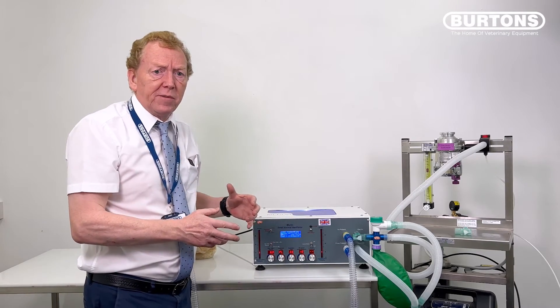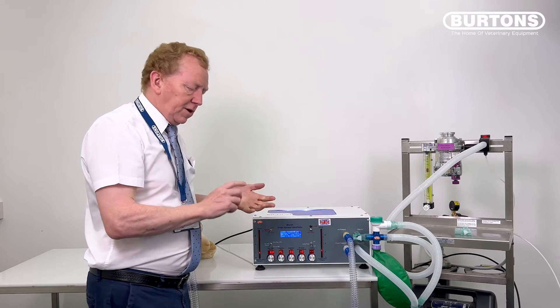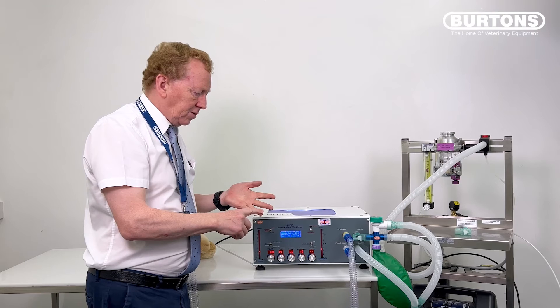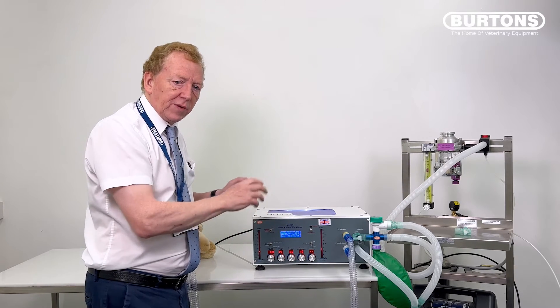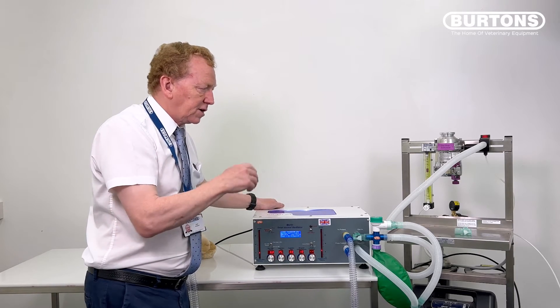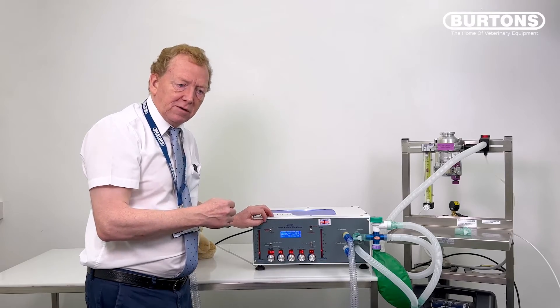There's a lot more information on long videos about how to set the machine up. Today's video is really about your checking, your setting up for your plumbing to get it done correctly, and then initial setup and off we go. So that's the non-rebreathing. I'm just going to swap to rebreathing, show you what to do there, and then that will conclude the video.